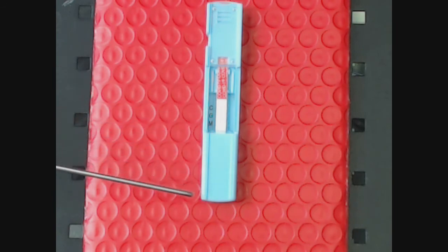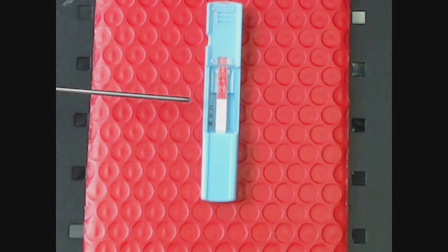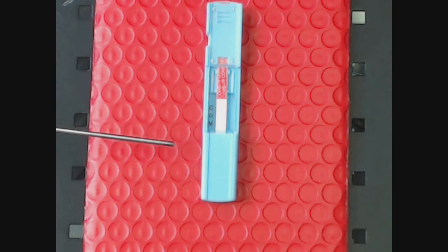This will ensure that the contact with the sample and the membranes are wholeheartedly interacted to make the accuracy of this test do exactly as it was designed to do: give you solid results quickly and fast.